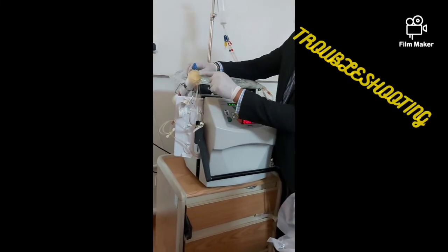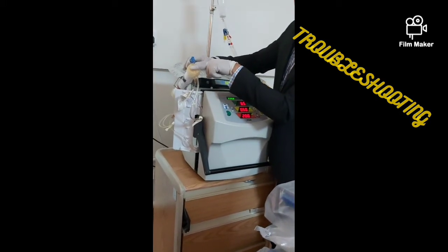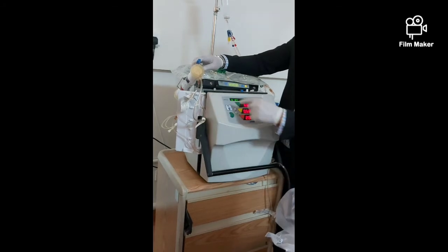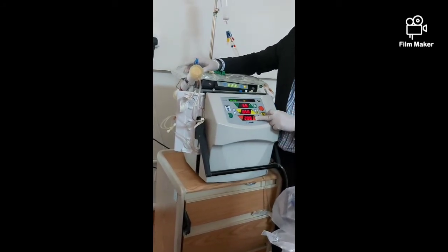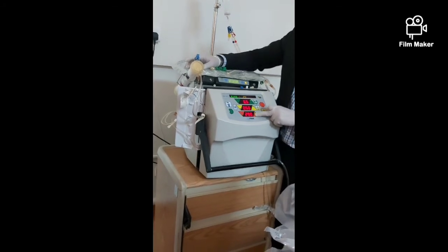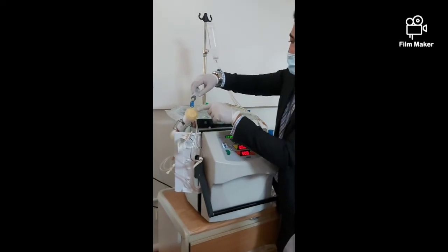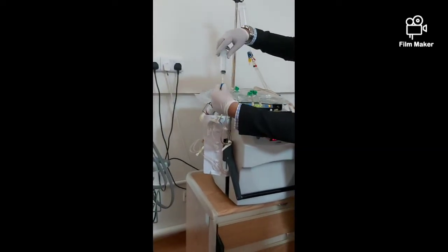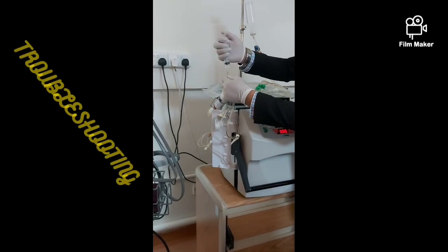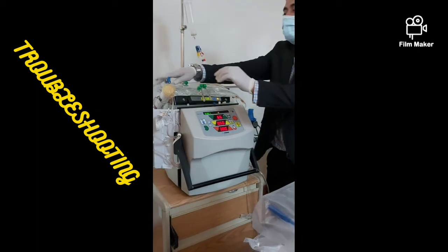If air goes through here it will collect here — you can see it coming and collecting. You can remove it — no problem for small air bubbles. But if air continues to come here, you need to remove it, because the air will go to the venous side. You can increase the blood pump speed anytime for the patient — maximum recommended is 350 to 450, up to 500. The air comes from here, so we need to remove it. Just open the clamp and drain it.